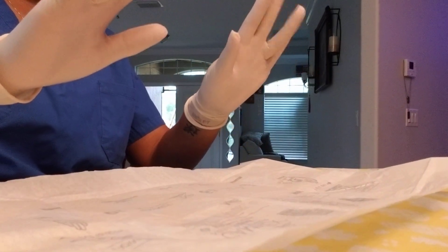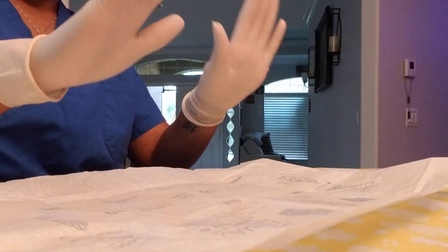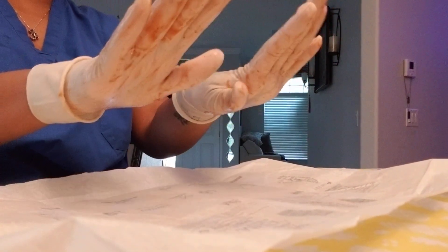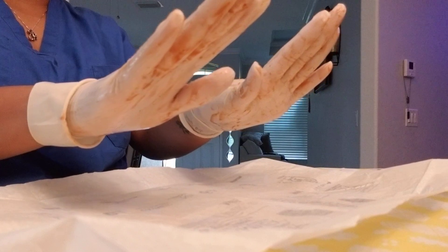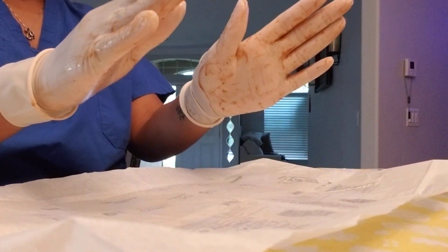Your fingers and palms are sterile. Now we're going to soil our gloves. That's enough — nice and soiled. I've got simulated fecal matter all over my hands.